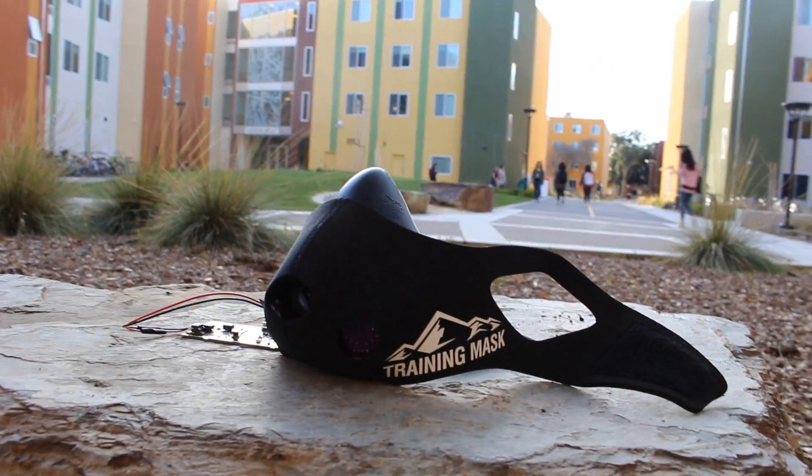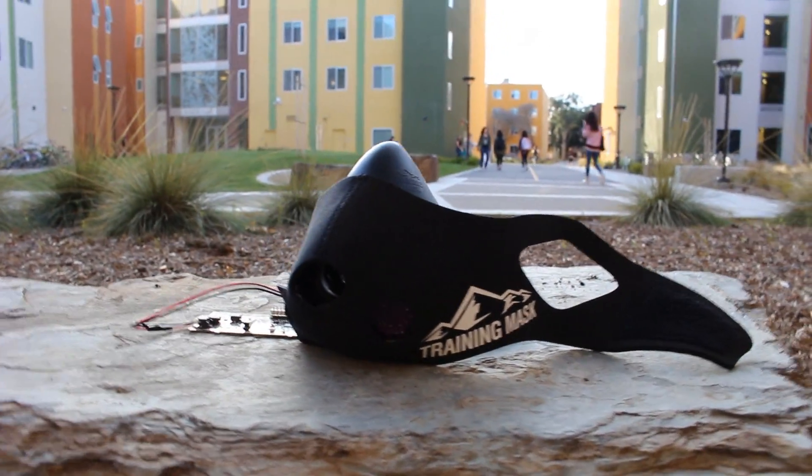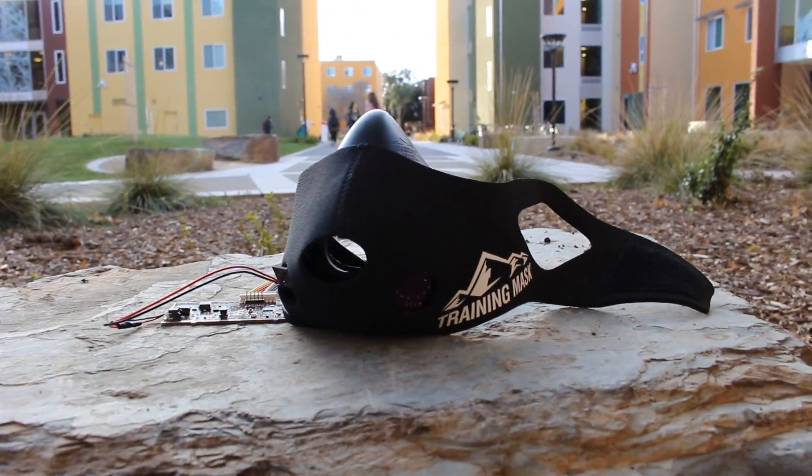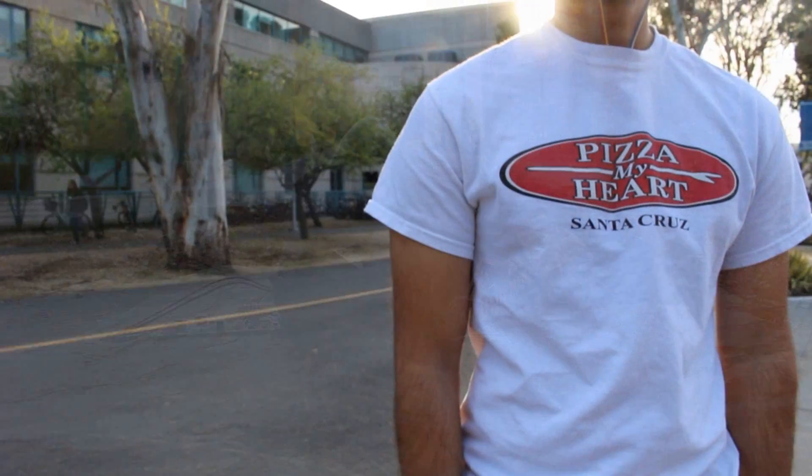Hello, we're Team Uku from UC Davis. Uku is a mobile mask that monitors the O2 and CO2 in your respiration as well as your activity levels without the need for large tubes and equipment.